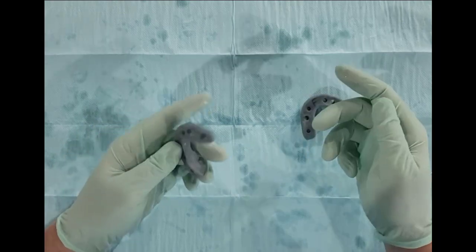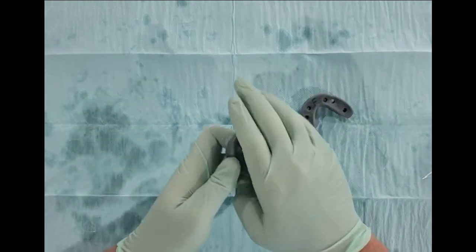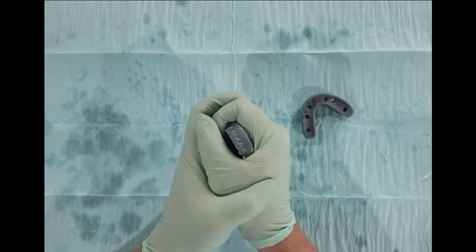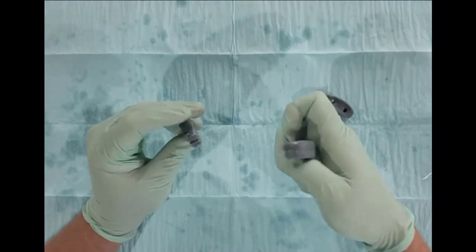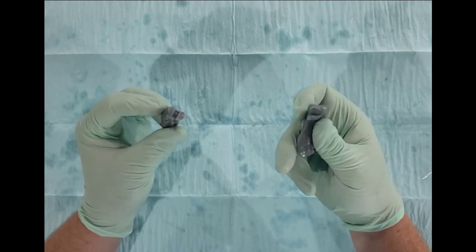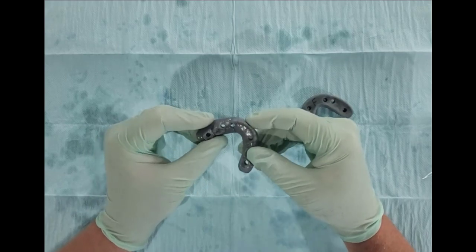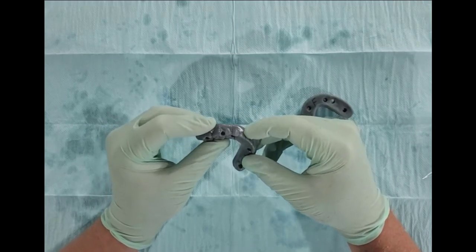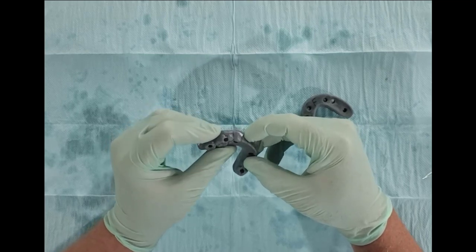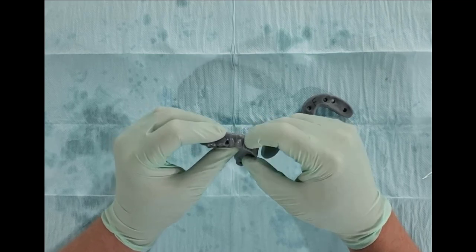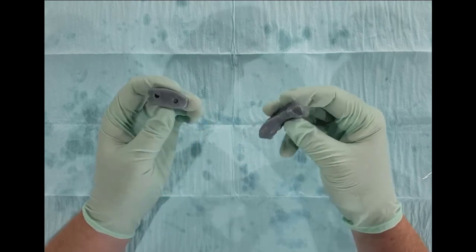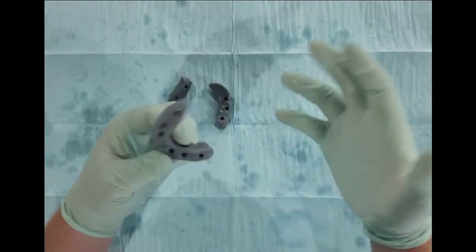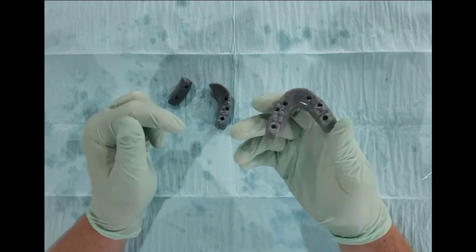I just want to see if I can break this thing. Let's start with the one without fiberglass and I'm going to just try to squeeze it. Relatively easy, that just popped right apart. You can see where the weak spot was right there. In my experience, if you ever try to make just a plain printed prosthetic that does not have any kind of reinforcement, this is the result most times.